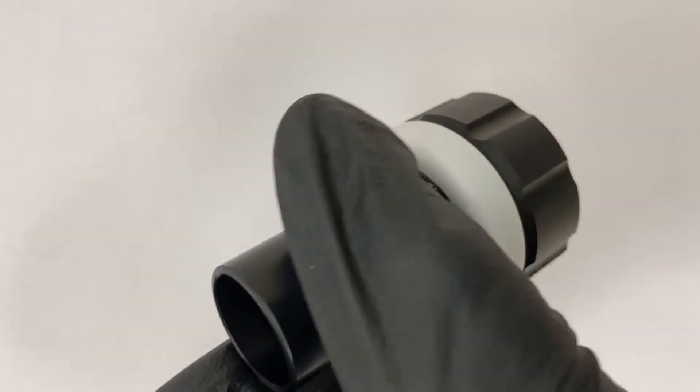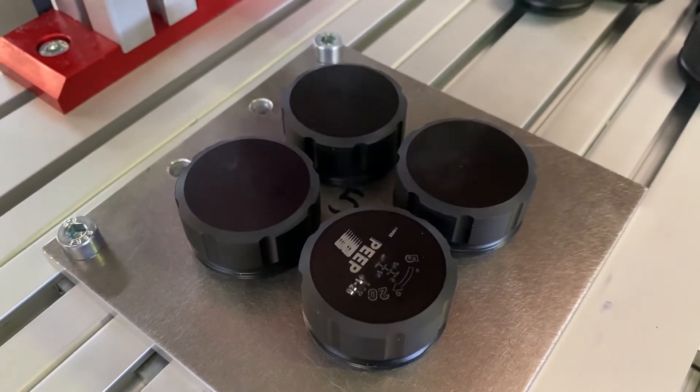Then we add an anti-grip knob, which is laser engraved to ensure a perfect alignment.